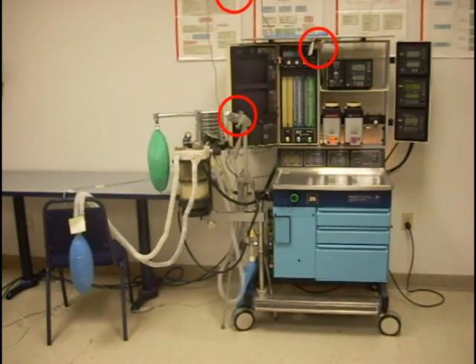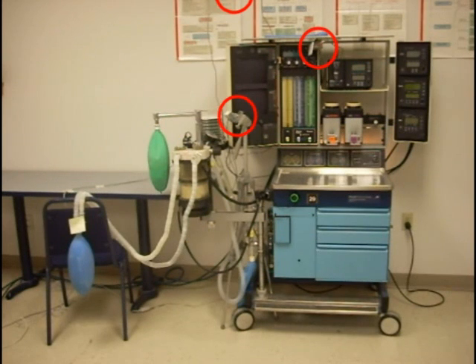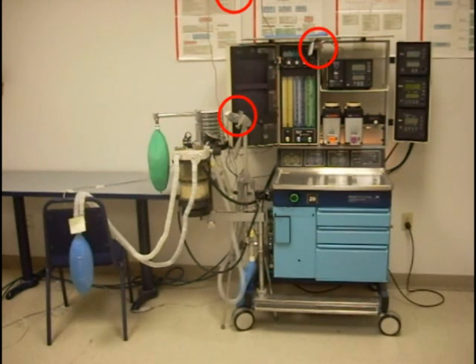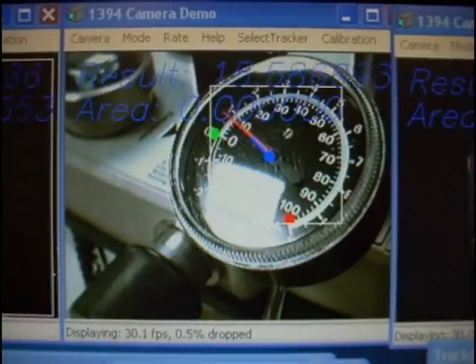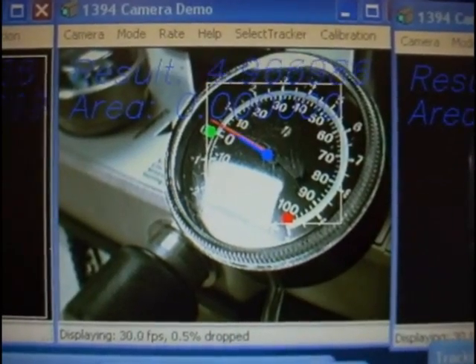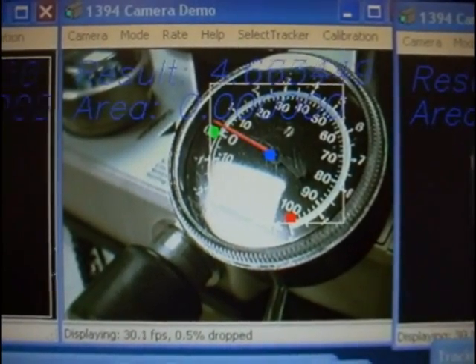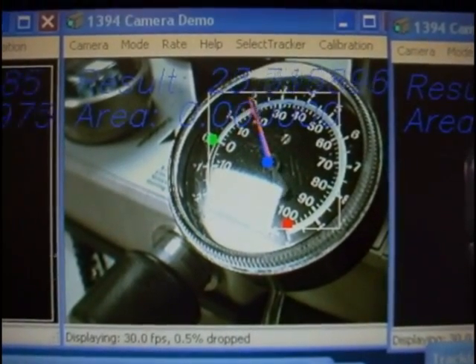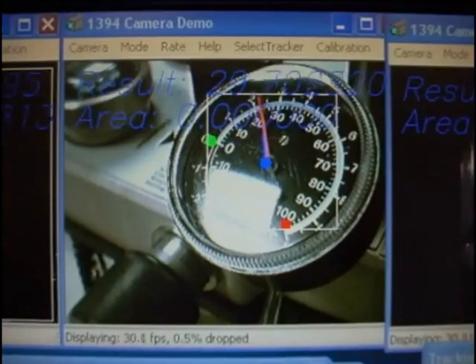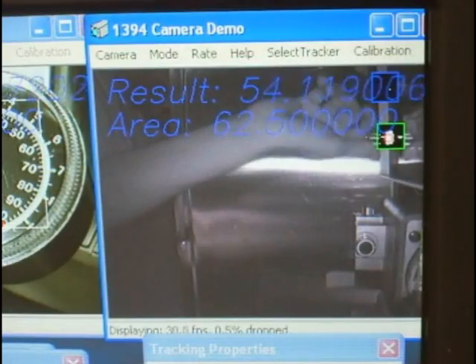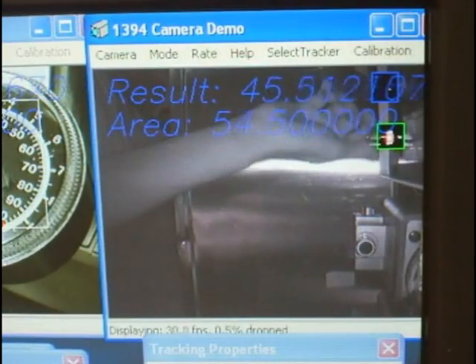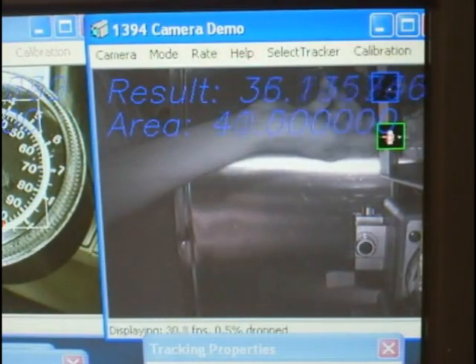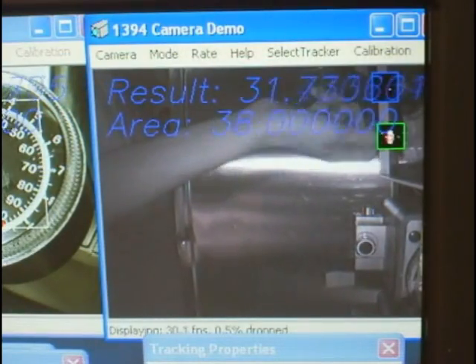The states in the machine are tracked in 2D with three webcams positioned around the machine. These webcams track the knobs and gauges on the machine using a combination of 2D color tracking and IR tracking. Using OpenCV-based software, the webcams are then able to detect the states of the machine.